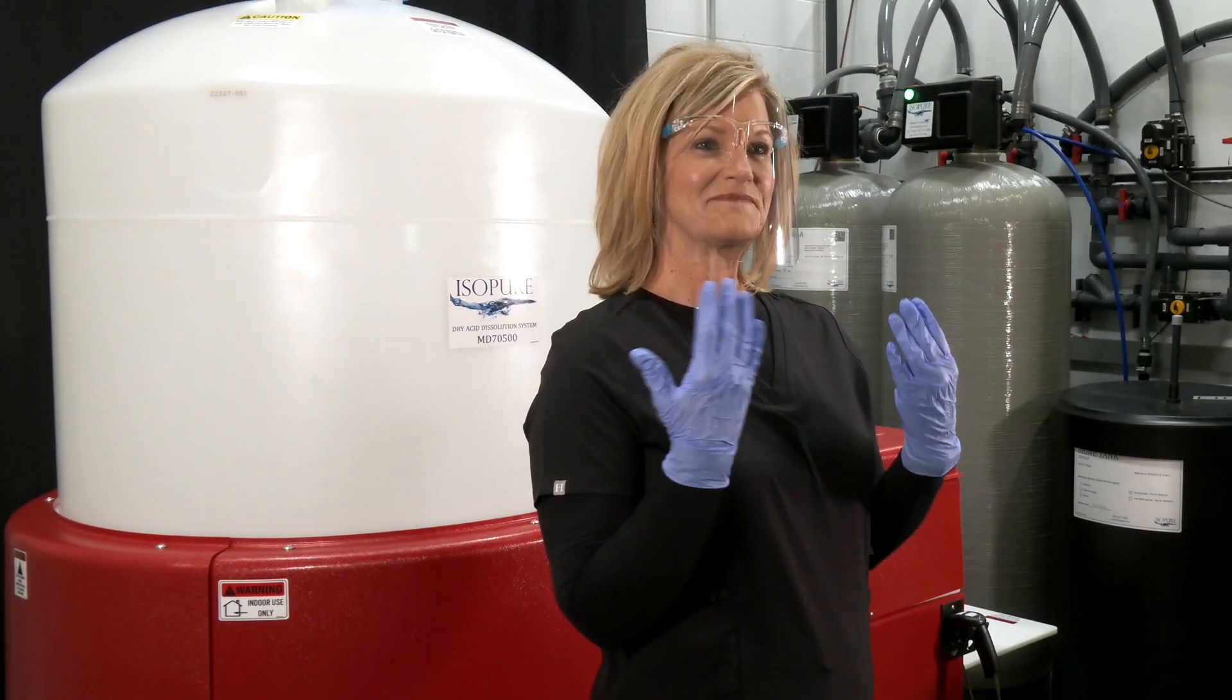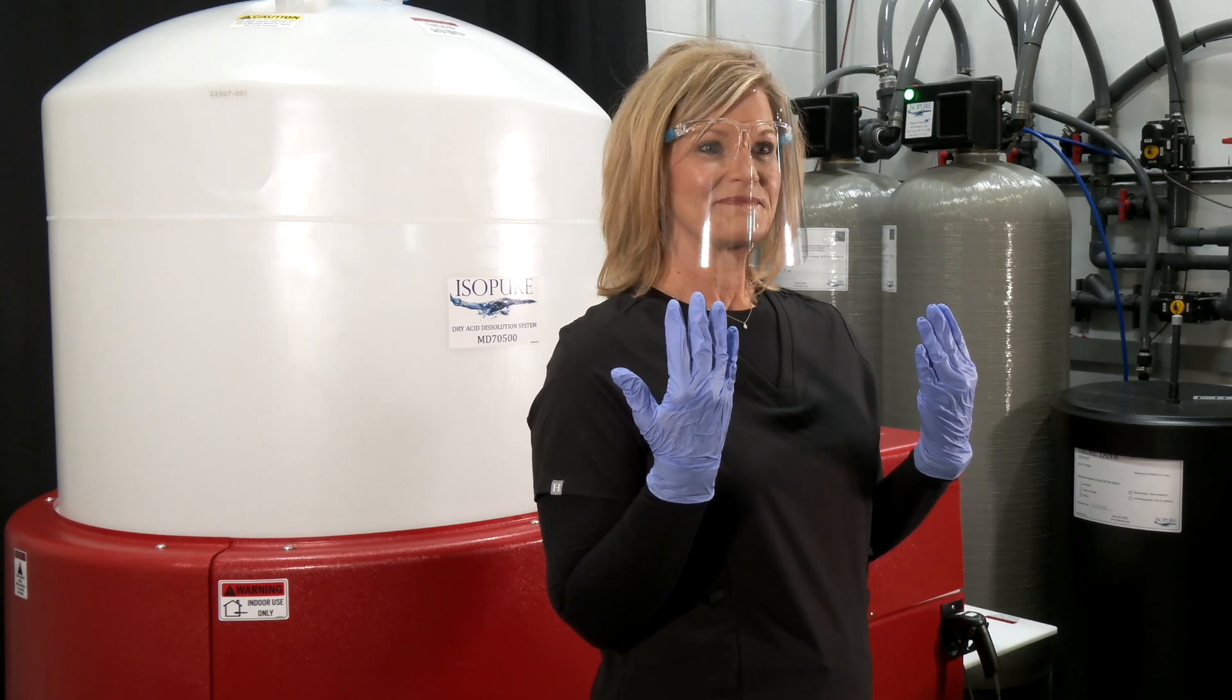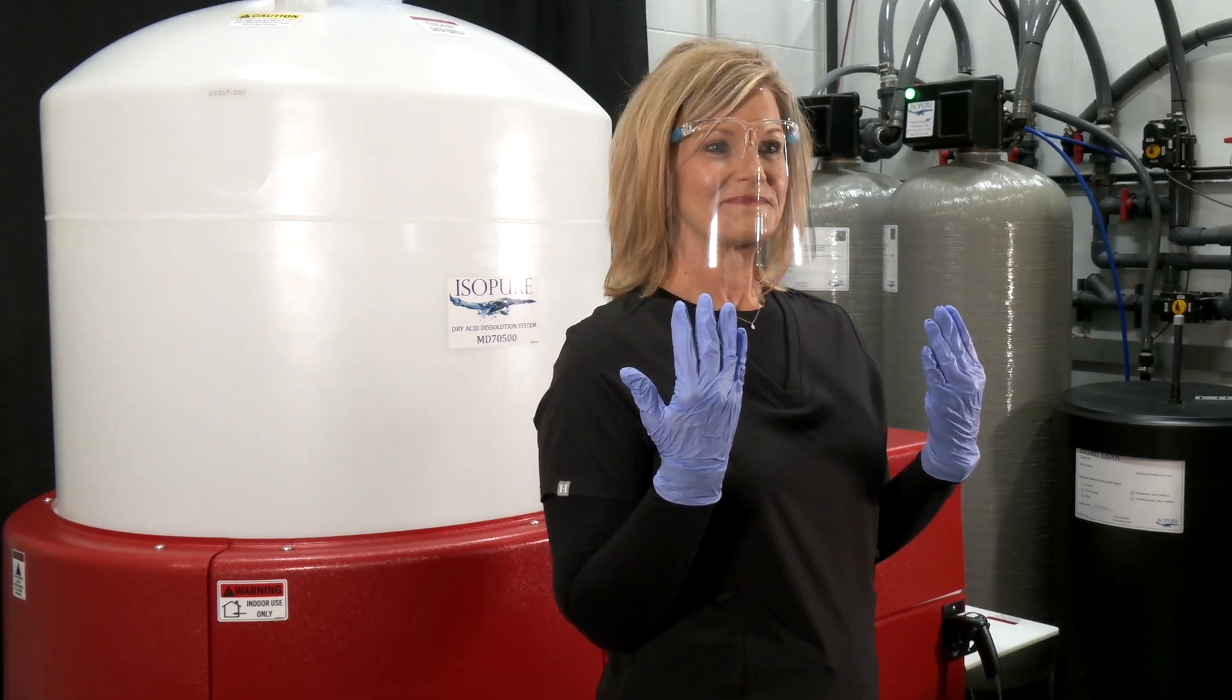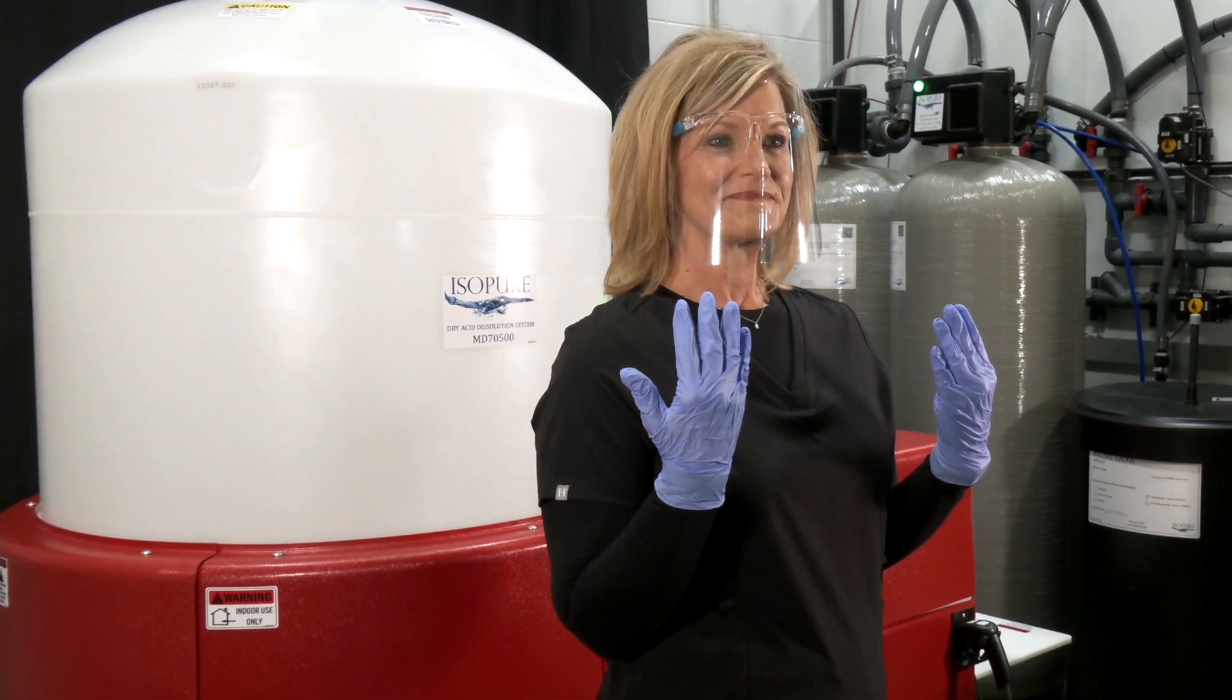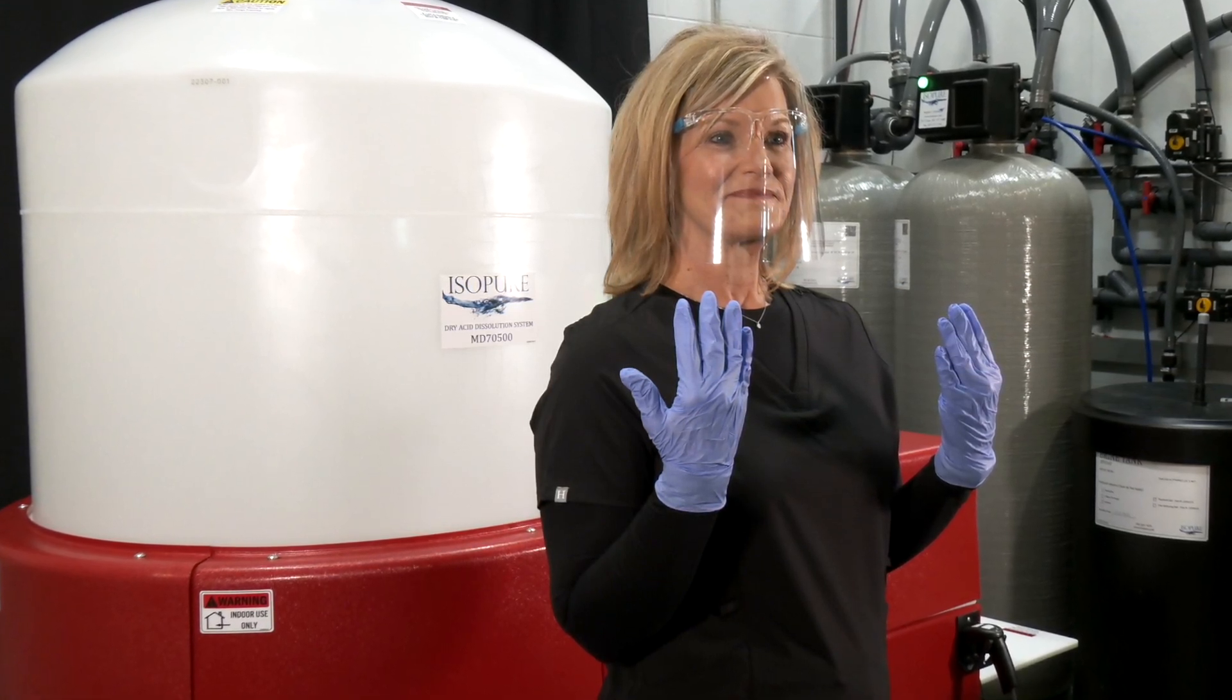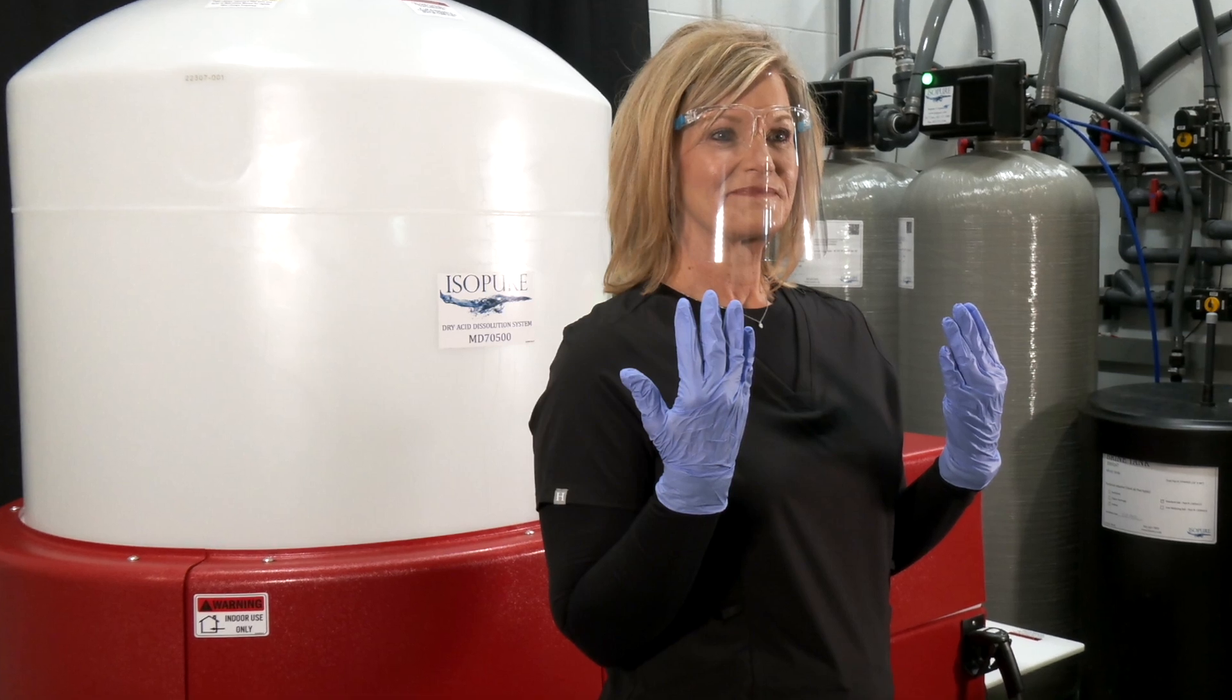Wear appropriate protective gear before starting. This includes gloves, suitable clothing that protects your skin from acid exposure, and protective eyewear. Also, refer to your clinic's policies and procedures regarding protective gear.